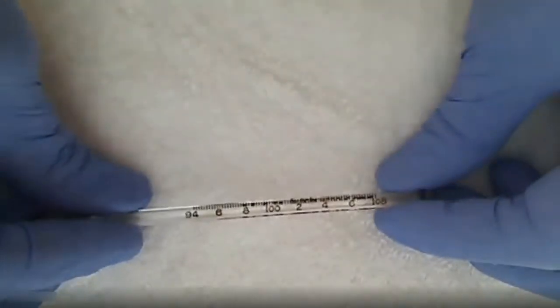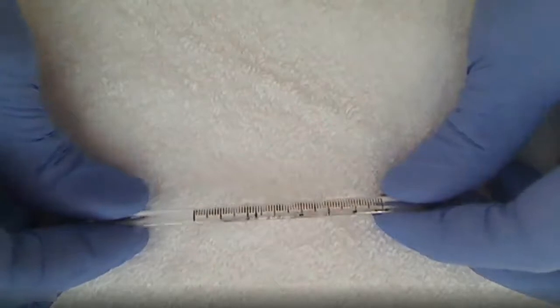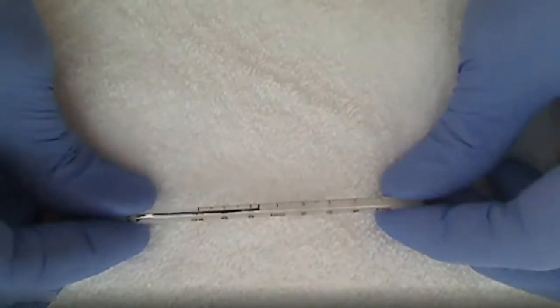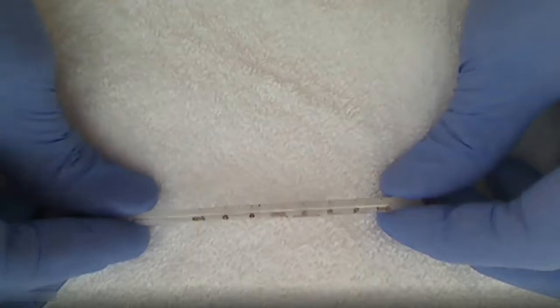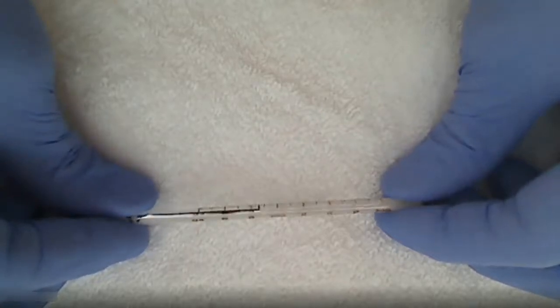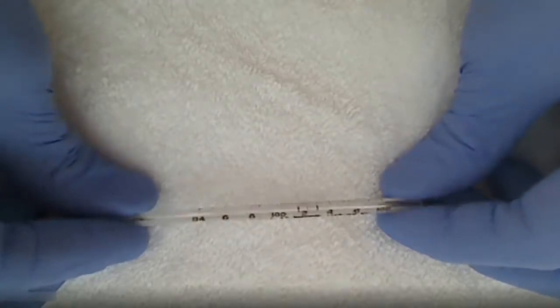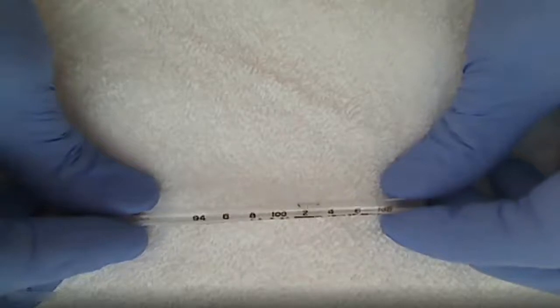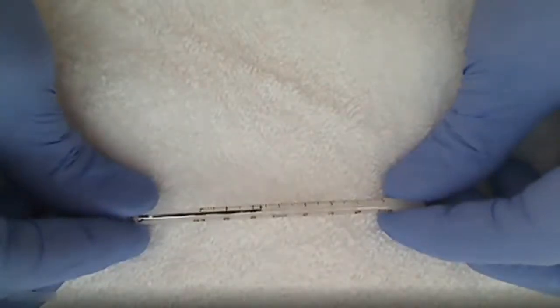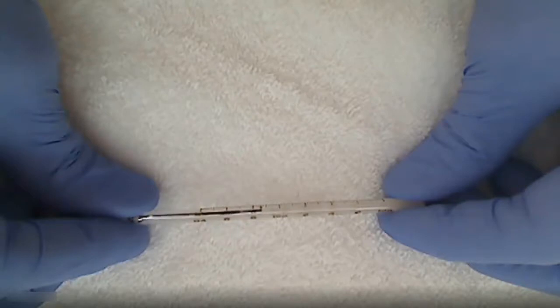Let's see. You see the numbers, you see the tick marks, there it is. And this one is right at 98. There's the 8, it's right on that arrow which is 98.6, normal body temperature. Too easy.